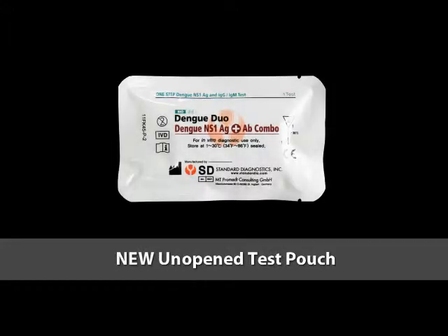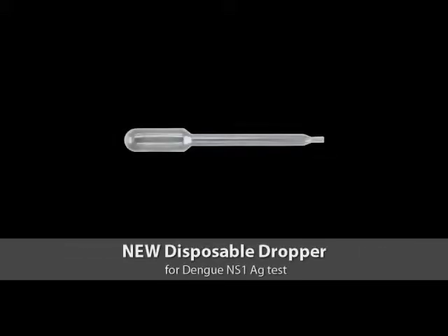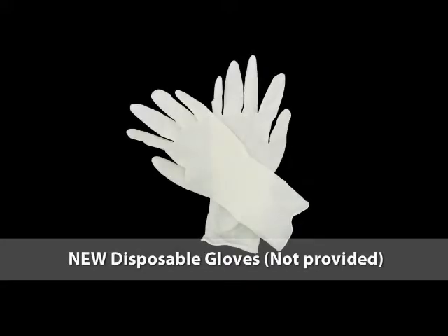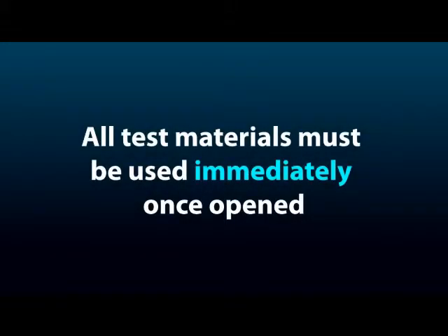New unopened test pouch. New disposable capillary pipette, 10 microliters, for dengue IgG IgM test. New disposable dropper for dengue NS1 antigen test. Buffer. New disposable gloves. Timer. All test materials must be used immediately once opened.